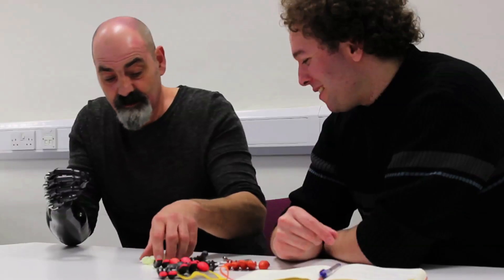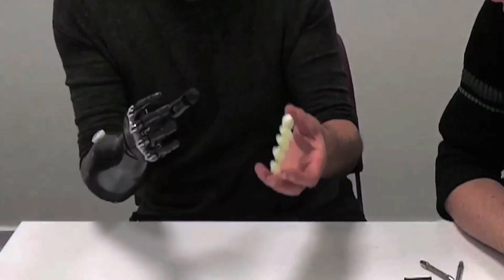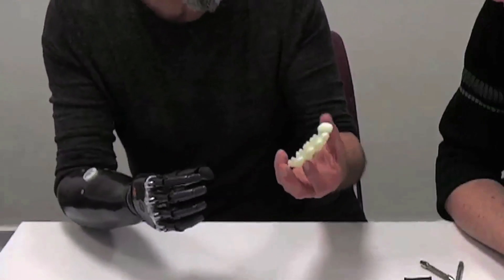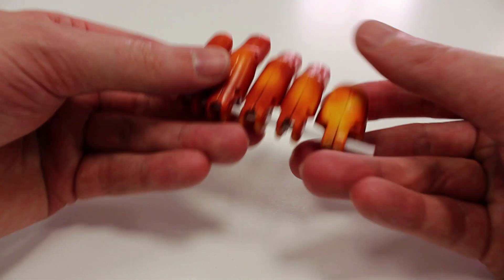You have no feeling — you don't have a sense of touching these. So unless you can see what you're holding, like in the dark — just a simple thing like tying your shoelaces in the dark — it's a nightmare. There are people who, if we were able to interchange these, with the right permissions and skills, you could either have glow-in-the-dark tips or thermochromic color-changing with heat.